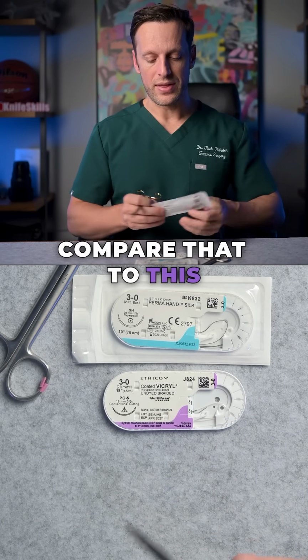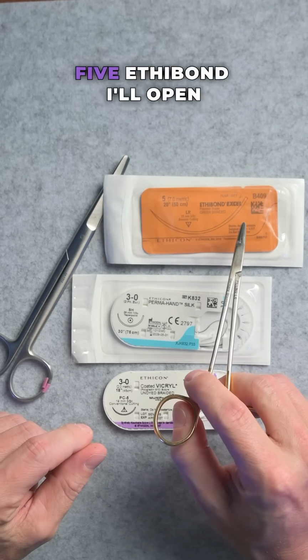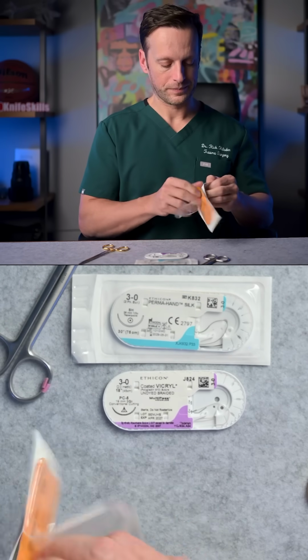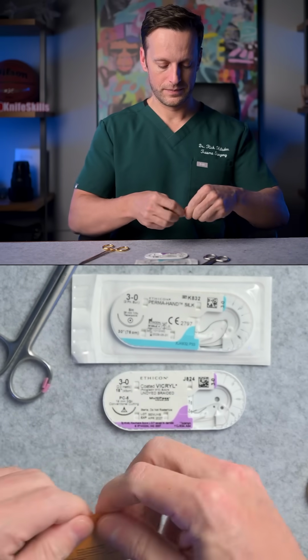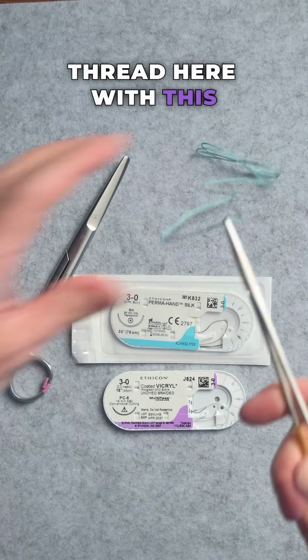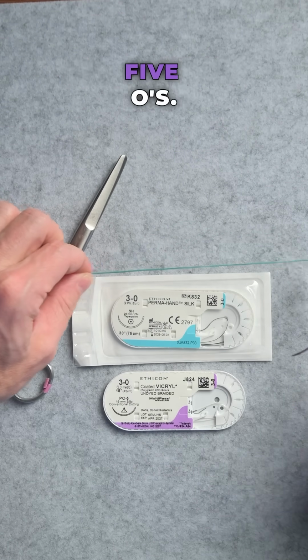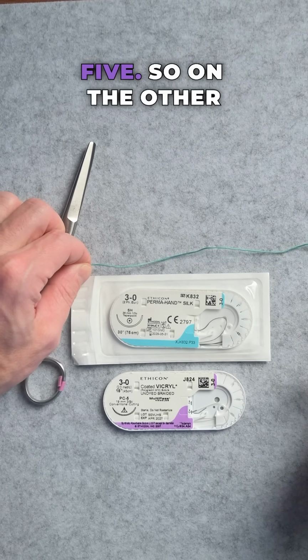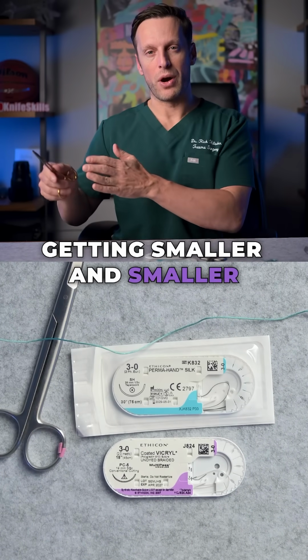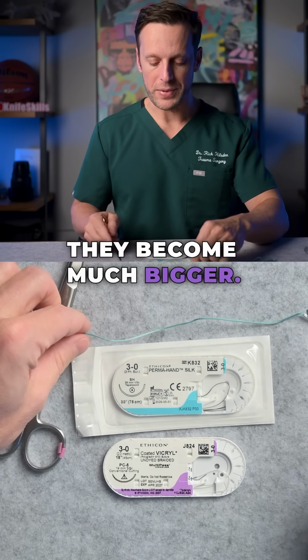Compare that to this stitch that I haven't opened, and that is a number 5 Ethibond. I'll open it up really quickly so you can get a sense. You can see that the thread here with this number 5 is incredibly thick. So this is not 5 O's, this is actually number 5. So on the other end of the scale, as it's getting smaller and smaller with the more O's, once you hit 1, 2, 3, they become much bigger.